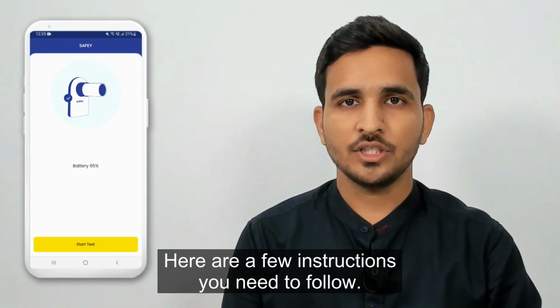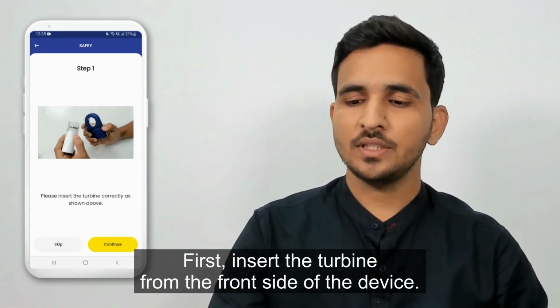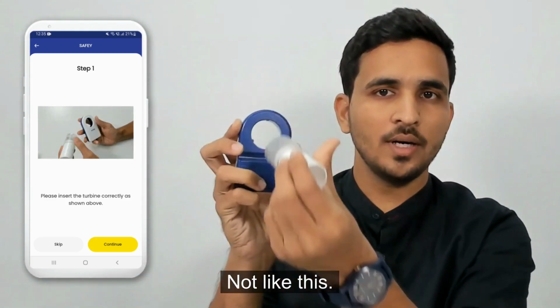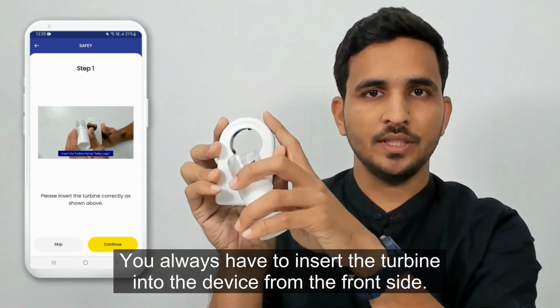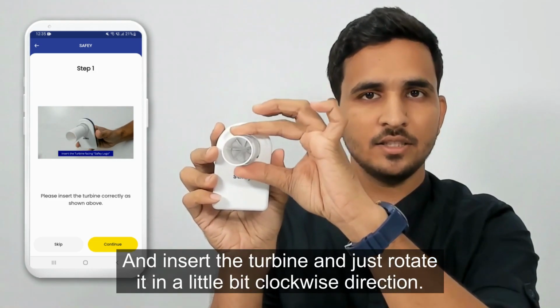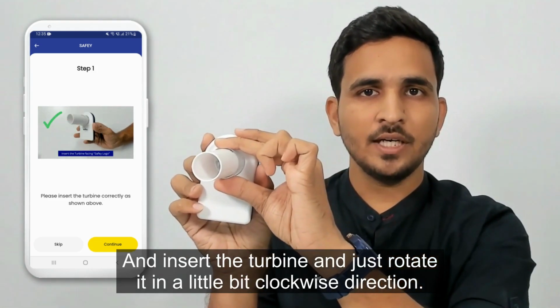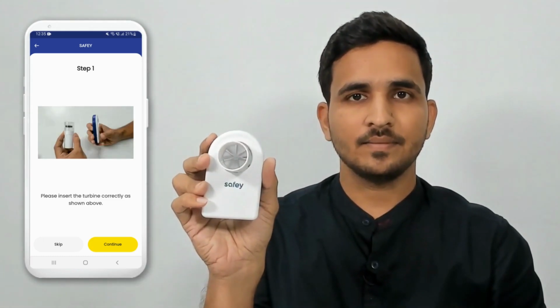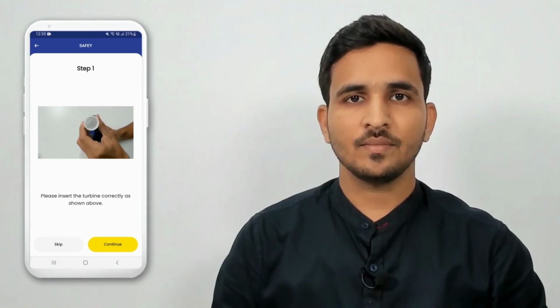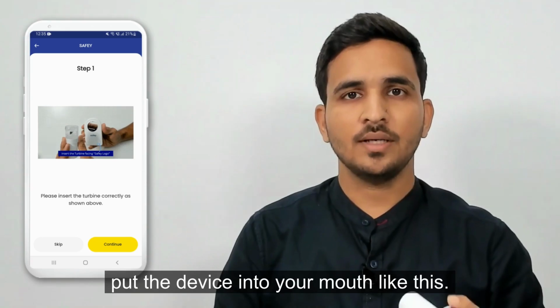Here are a few instructions you need to follow. First, insert the turbine from the front side of the device. Not like this. You always have to insert the turbine into the device from the front side. And insert the turbine and just rotate it in a little bit clockwise direction. Then take a deep inhale and put the device into your mouth like this.